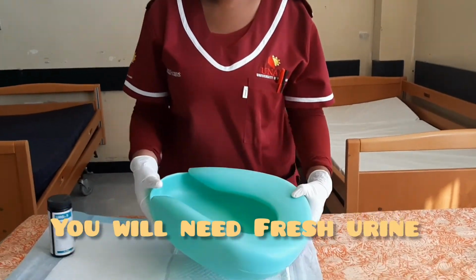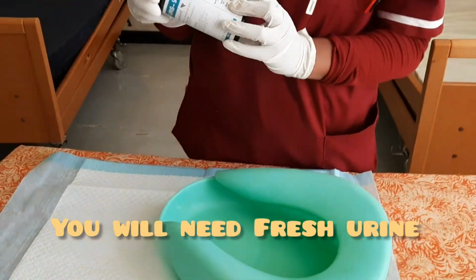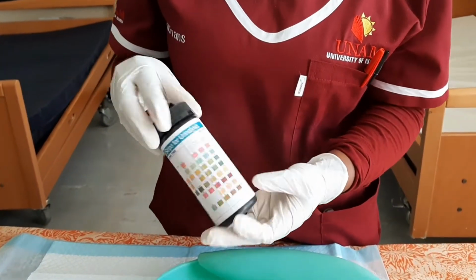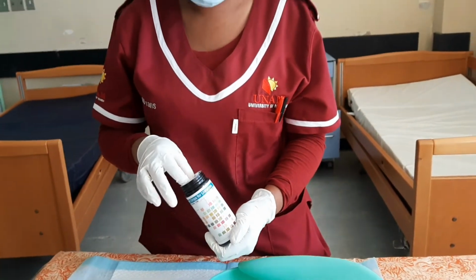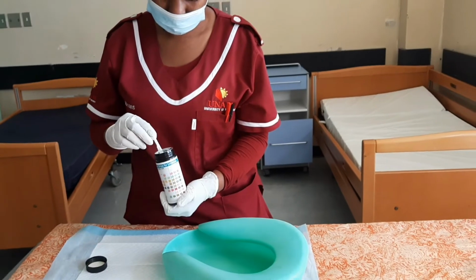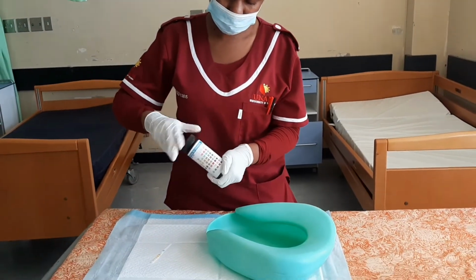So we have the patient's urine. Now we're going to test. This is the urine dipstick. Take it out. You close it.